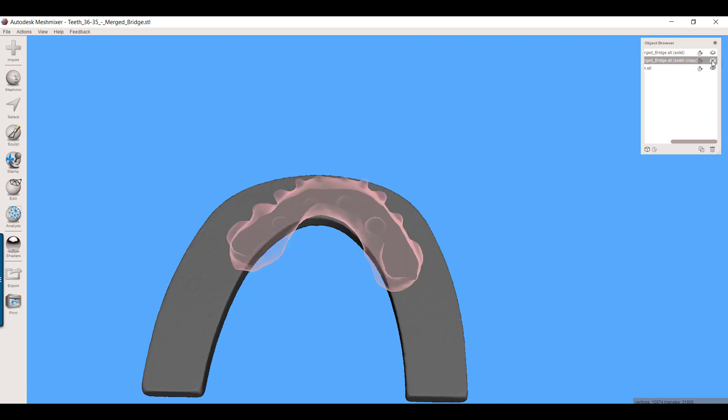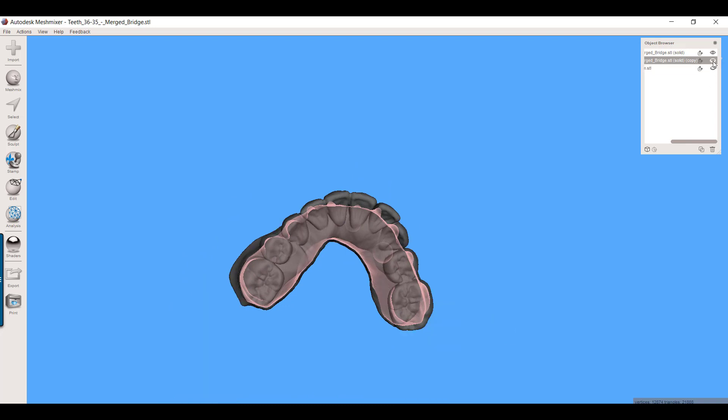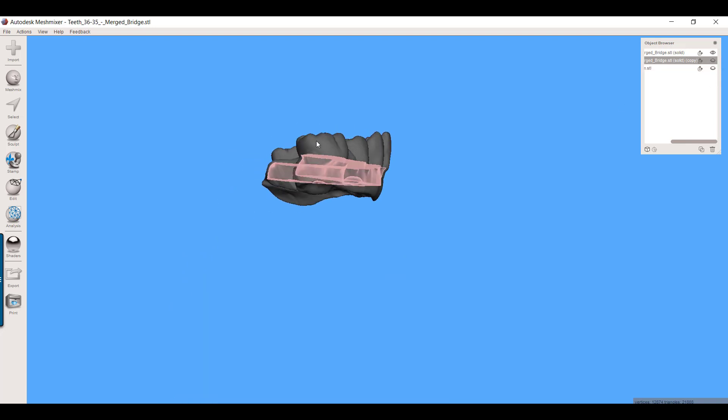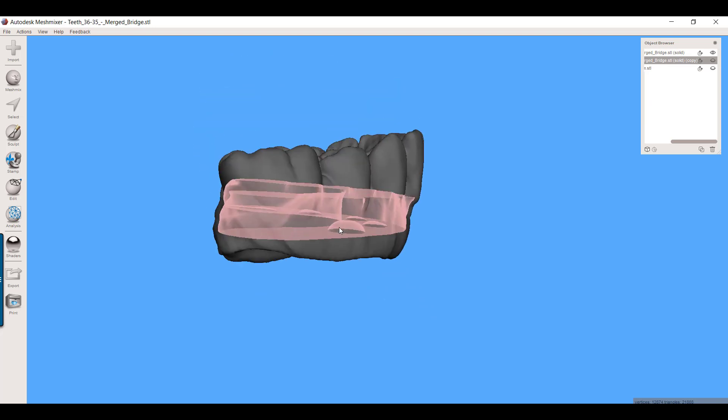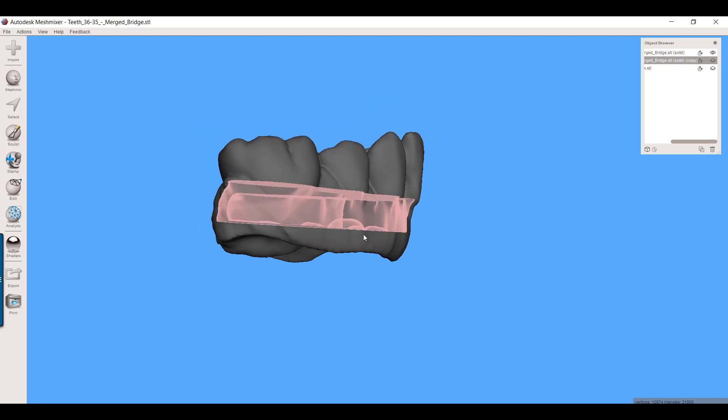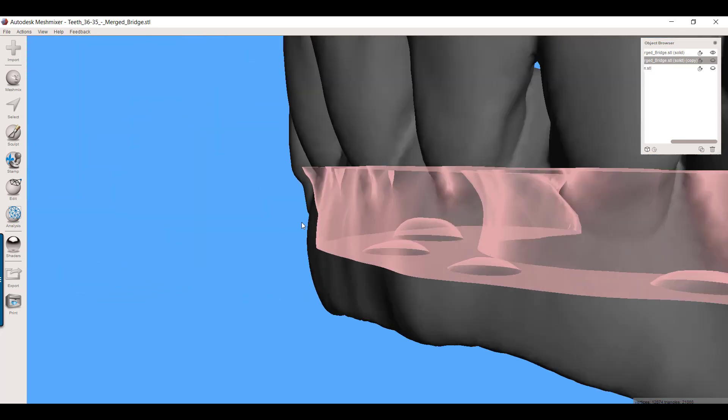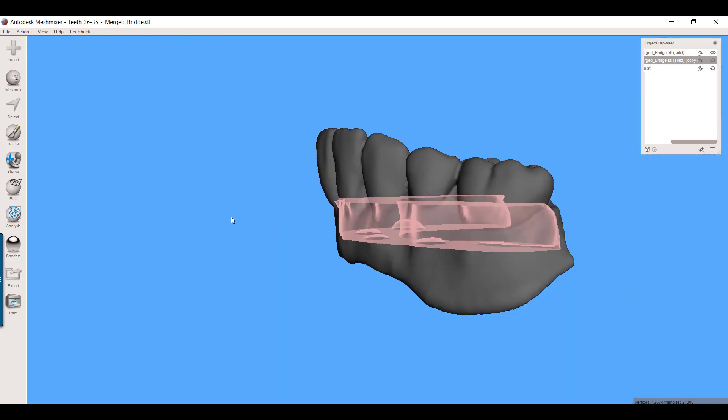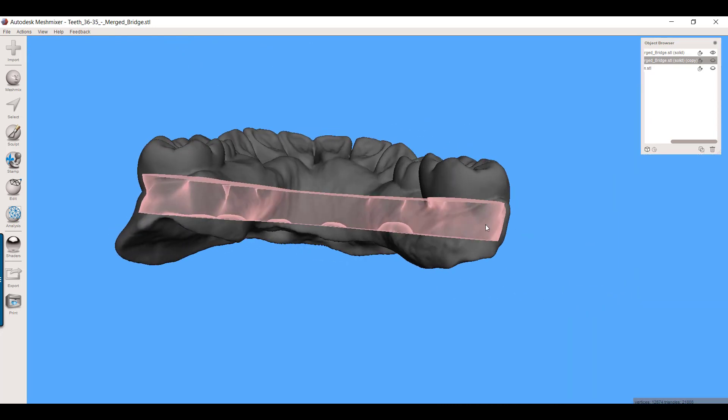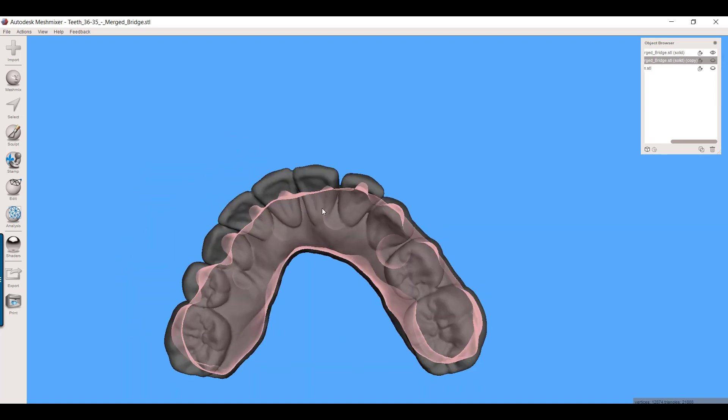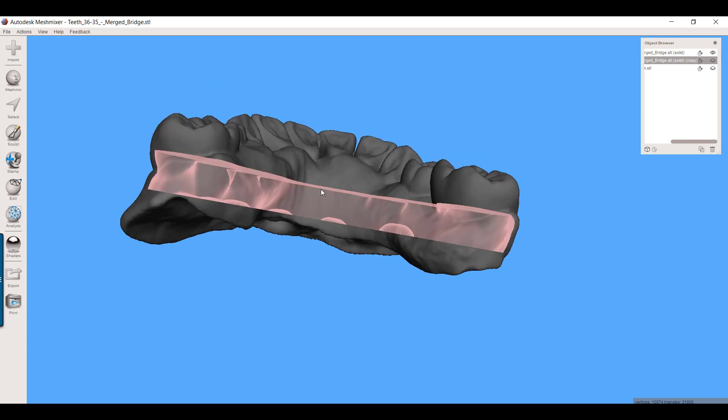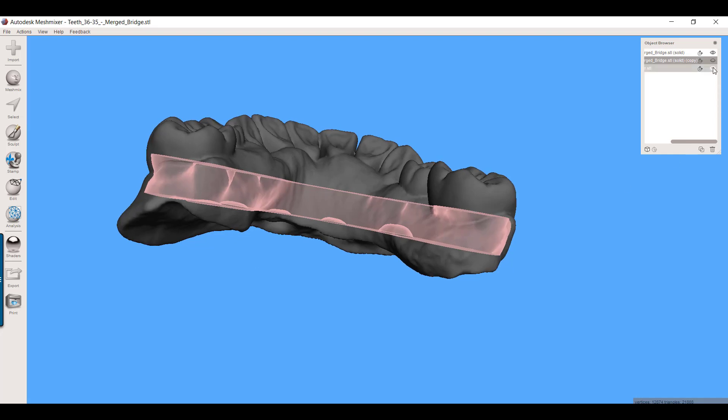So I want you to imagine, if you can see in 3D, this is the slot that's going to be created. Do you see how by the fact that I shrunk that by half a millimeter, do you see how that left an outer shell that will print with the full facial surface? There's not going to be any interruptions in that, so it'll maintain some structural integrity, but it's going to allow me to create a slot from the backside. Where if I trim that Trilor bar to this exact same shape, you know in this profile, that this Trilor should just slide right into the slot that was created.